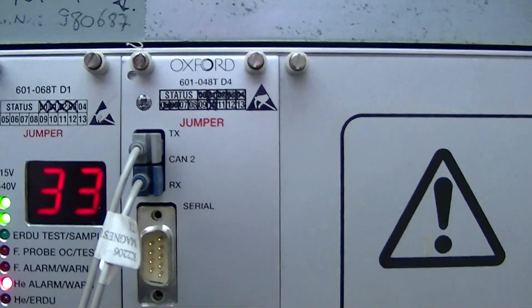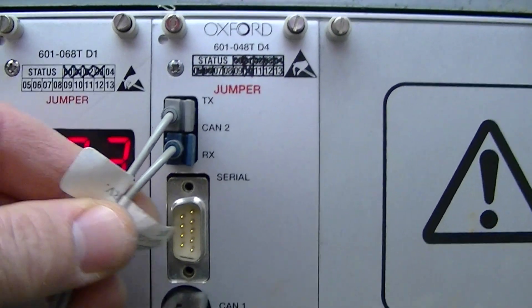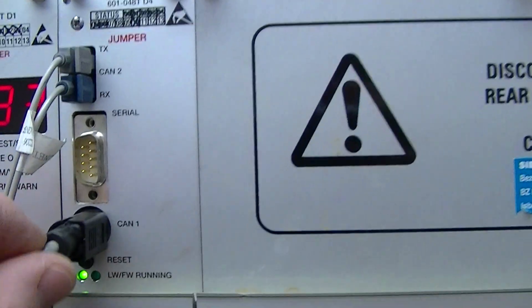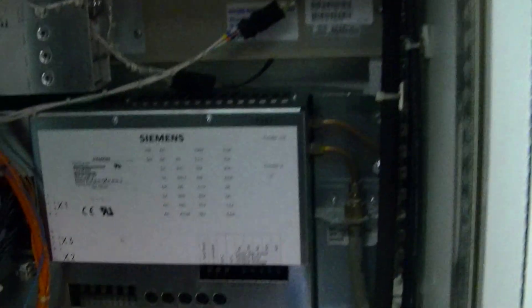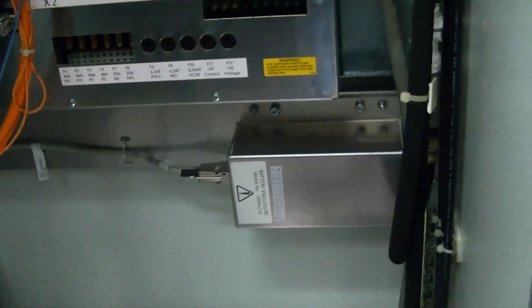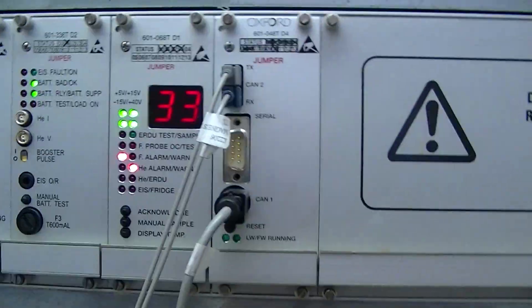And then finally the D4 board, which is right here. This is your CAN bus and this is the other CAN bus. The difference is one is electrical and this one is fiber optic. This is where the battery used to be — it's no longer there, no replaceable battery by itself. That's all that there is on the magnet supervision on a four-channel Symphony.